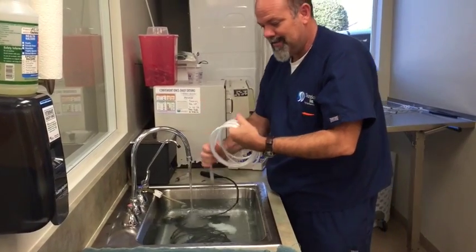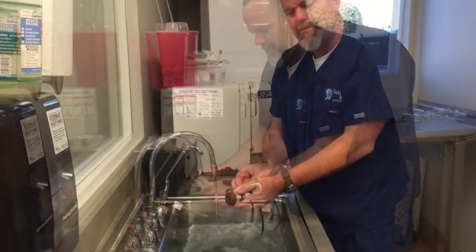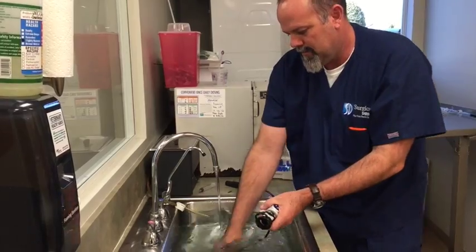So it's going to be pretty much the same exact process with everything. I would say rinse it with distilled water — that's typically what you'll do: scrub with the tap water and rinse with the RO.